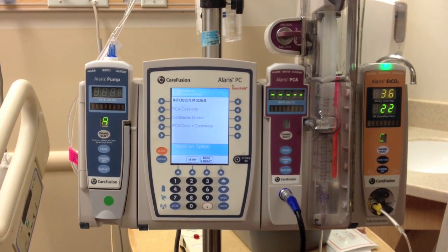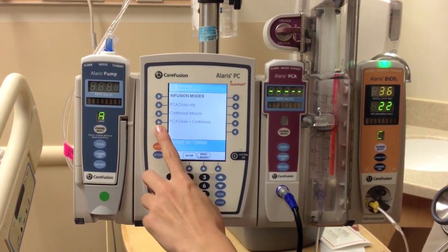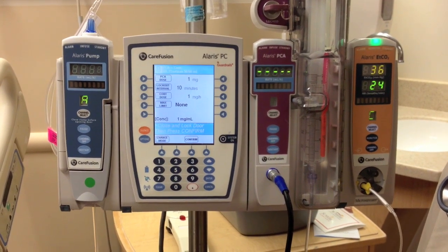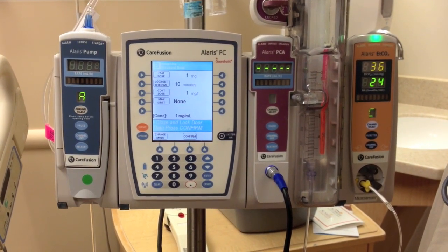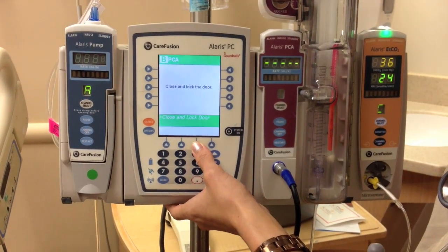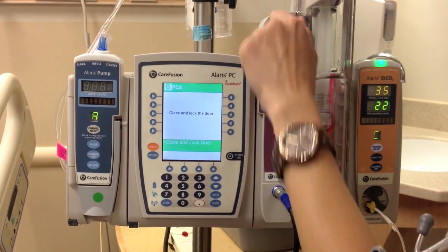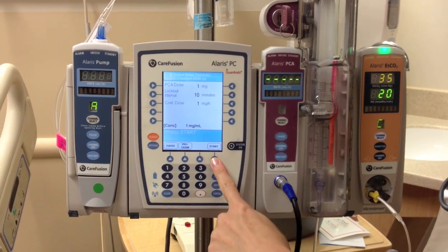Select the dose that you will be infusing. Confirm the PCA dose, lockout interval, max limit, and continued dose. Make sure to put the key in and lock the compartment door. Begin the infusion by pressing start.